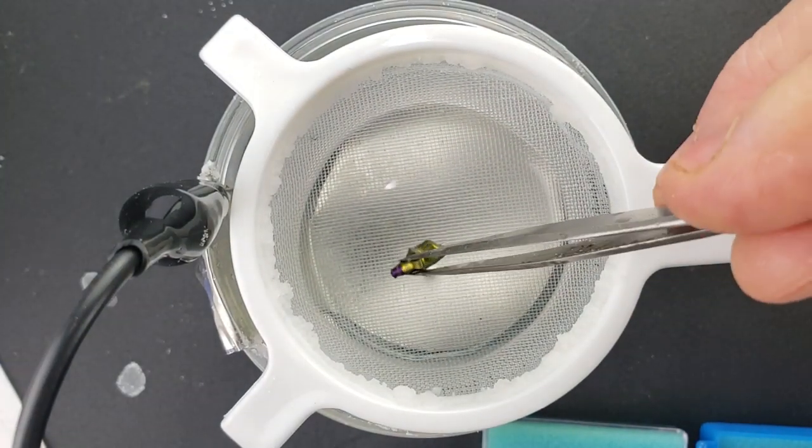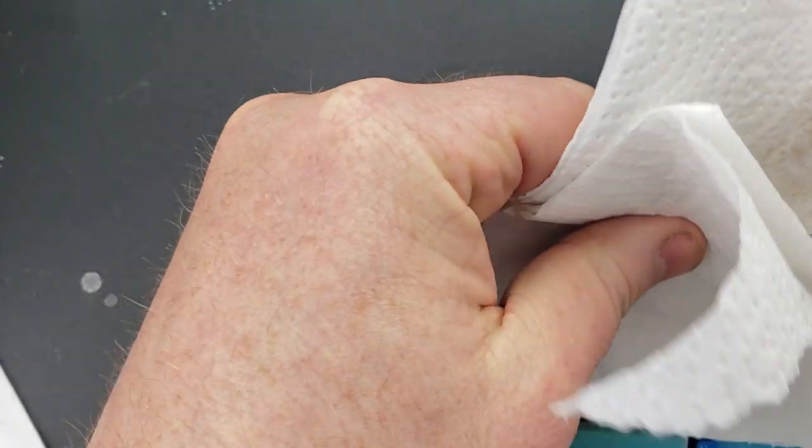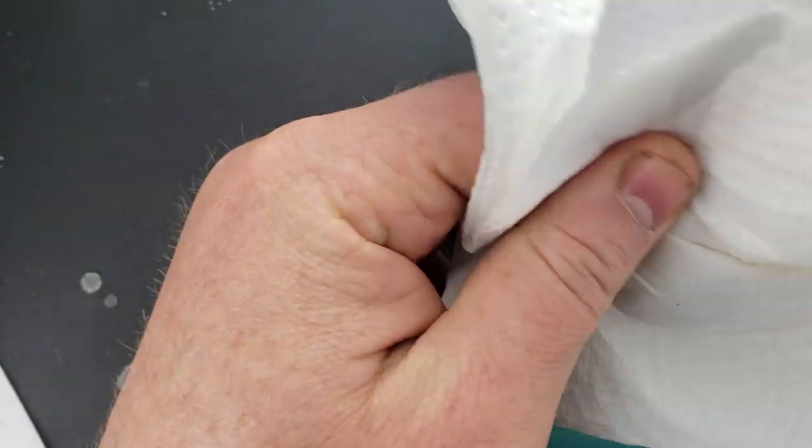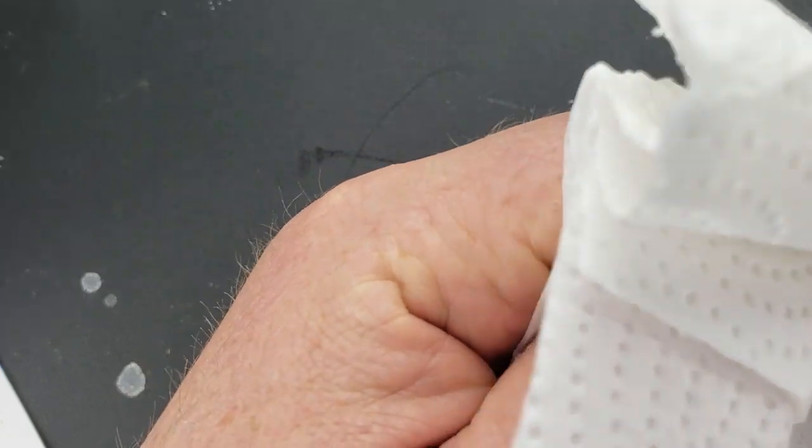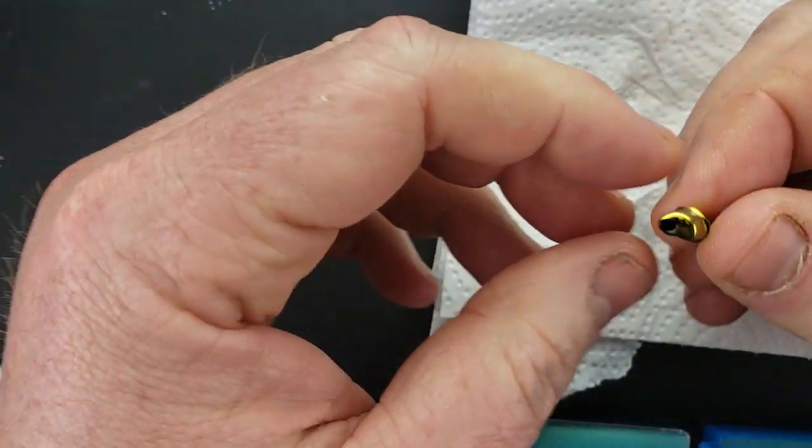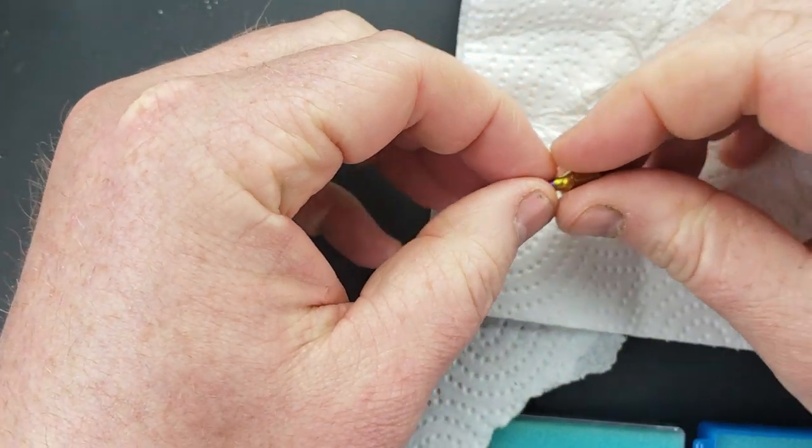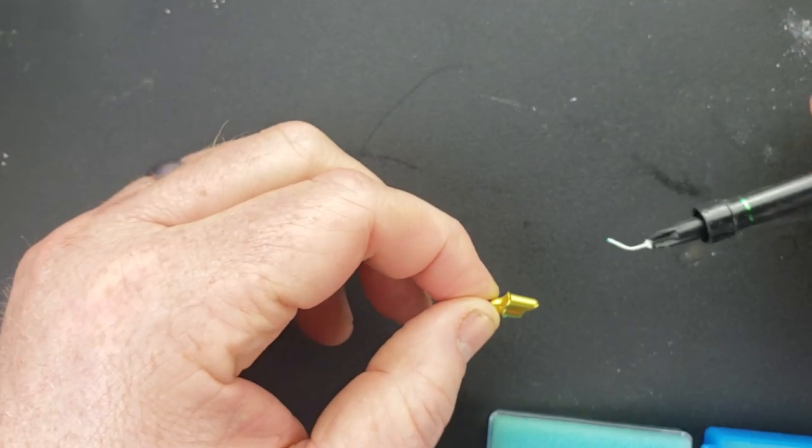Now for many abutments you could just stop at this, and usually I would honestly, but I'm going to go ahead and show you if you wanted to take it a step further and color it a little bit more.